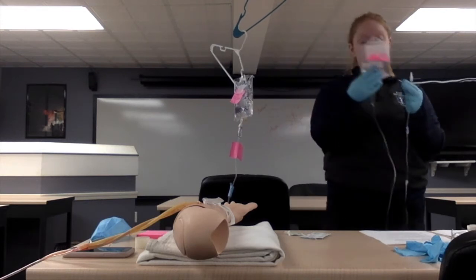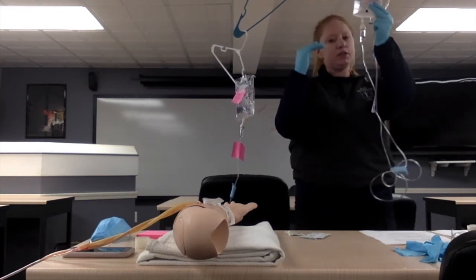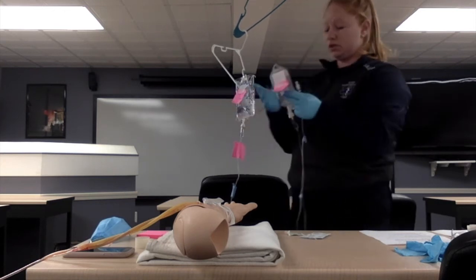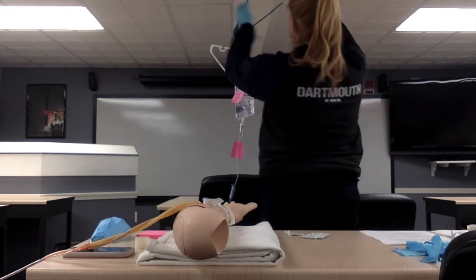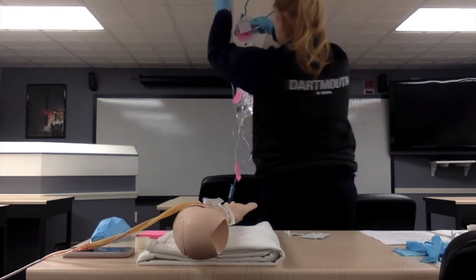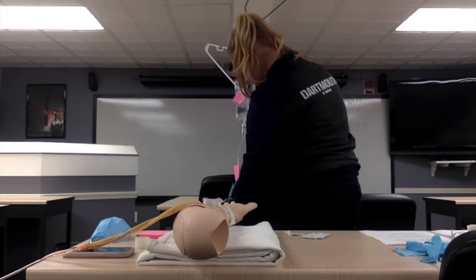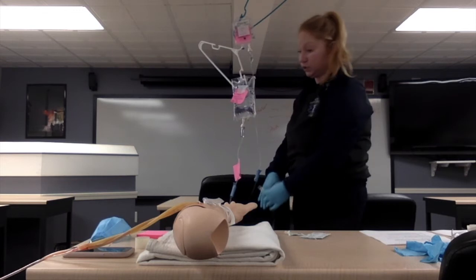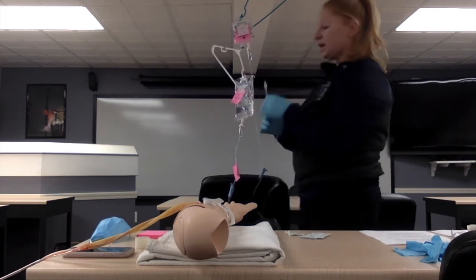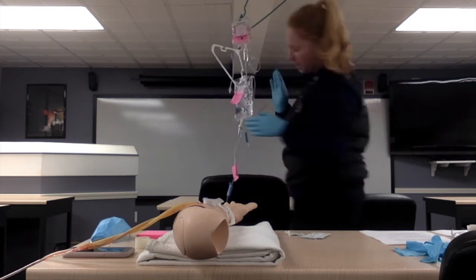And you're going to prime this the same way. So we'll fill the chamber halfway. So you can squeeze that so you can see it. Again, if it's filled too much, then you're not going to be able to count the drops, which you need to do. So we're going to make sure that the line is primed. Because it's the secondary, it's going to be higher than the primary. Make sure you're cautious with this because it is medication, so you don't want to lose too much because you need to get the whole recommended dose. Again, we have the cover on here, so it's still staying sterile, so it hasn't touched anything, so we don't have to worry about that.